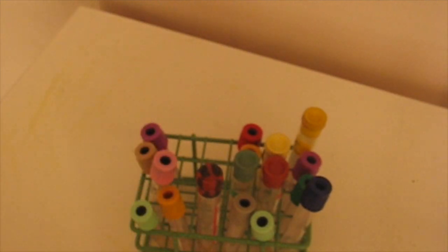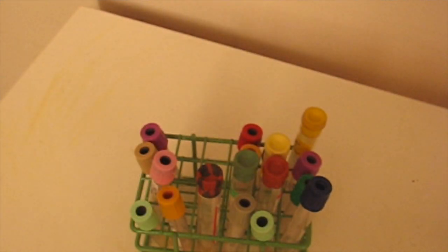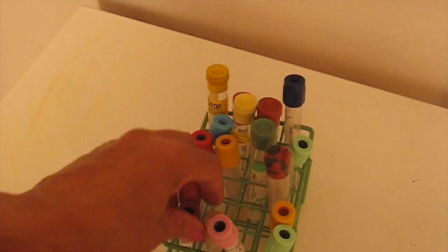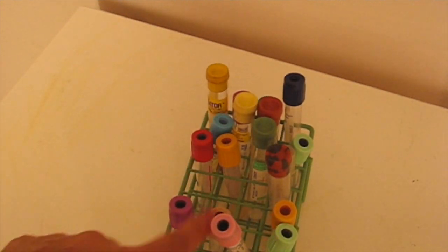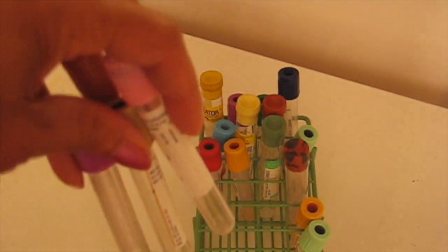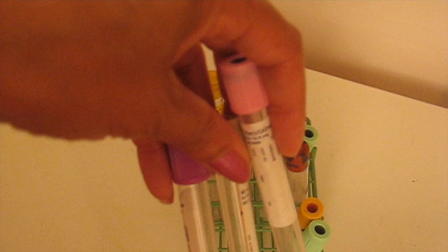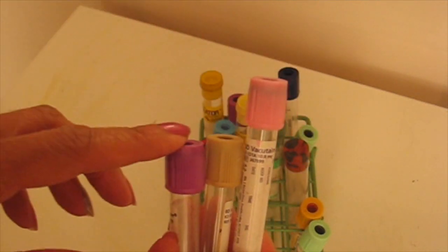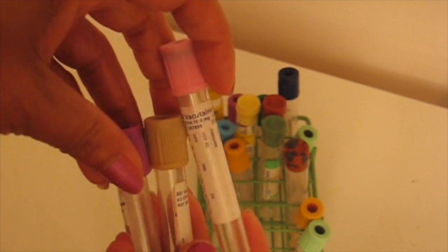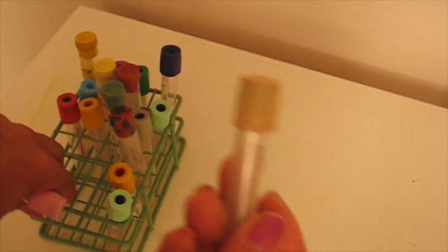Hey everybody, this is going to be a quick tutorial pertaining to our EDTA tubes. I've always gone over the EDTA tubes as far as the lavender and the pink top, but I very rarely talk about the tan top because it's one that we don't use a lot.